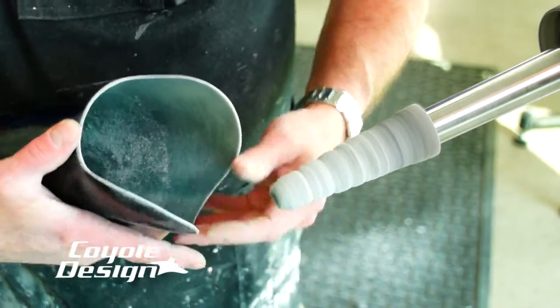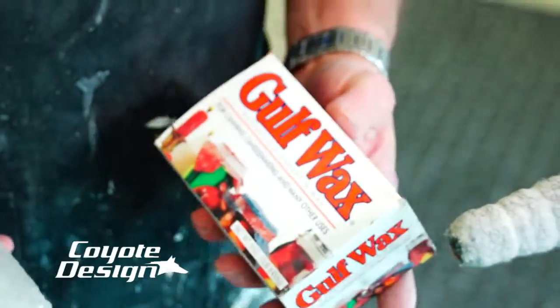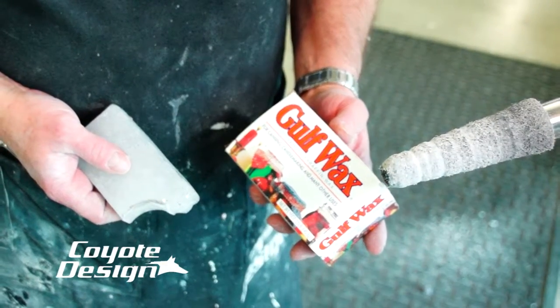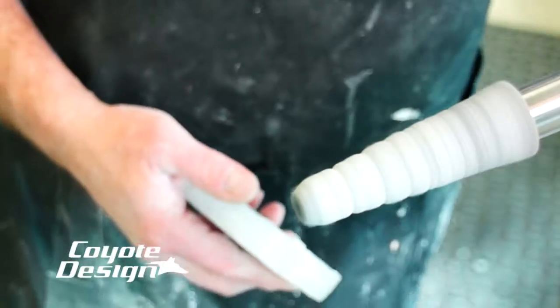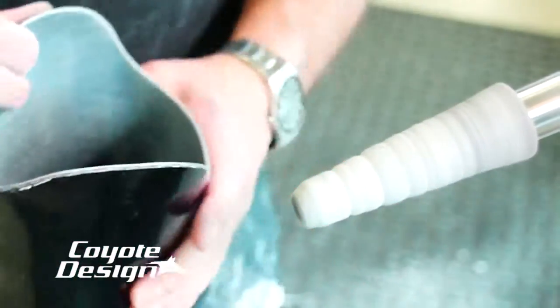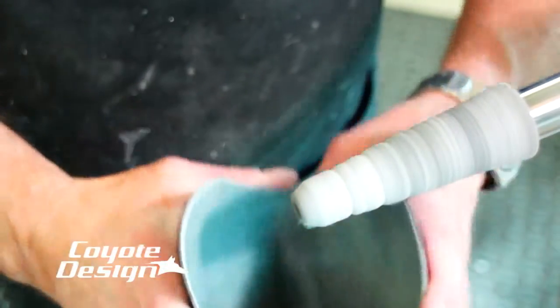At this point I'm done, but if your edge still feels a little abrasive, part of it is due to the dryness of the composite or even carbon braid. What I found is if I take a stick of paraffin wax — you can get it at any grocery store, just regular canning paraffin wax — I turn the machine on and run that wax across the wheel. It builds up a little coating, then I kick it back on slow and work my edges over again. That little bit of wax acts as a coating, takes the dryness off the edge of the lamination, and when you're finished it really turns out nice. The slow wheel with finishing cones was 90% of the trick to getting them smooth.